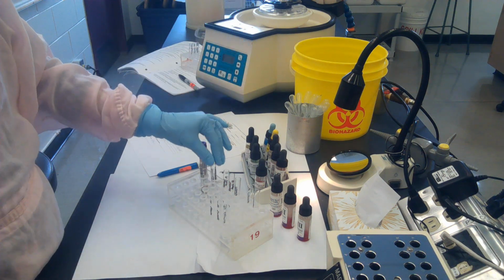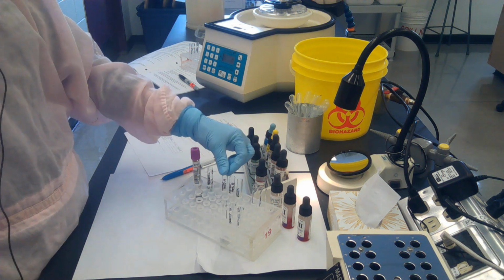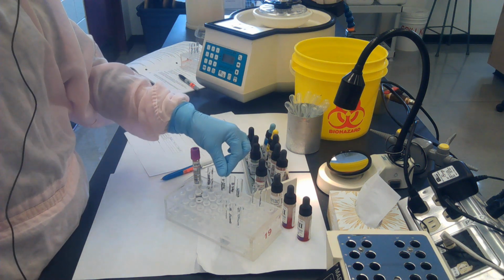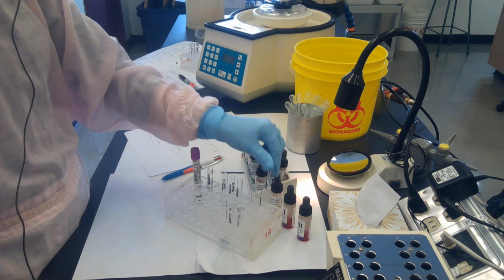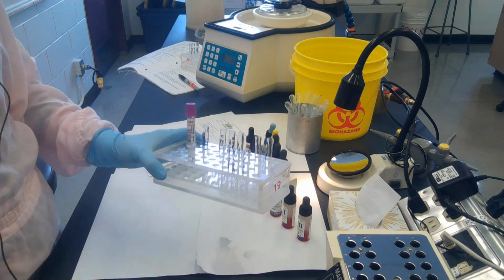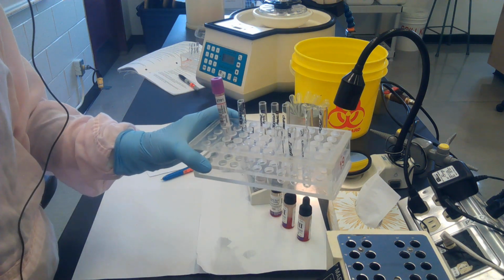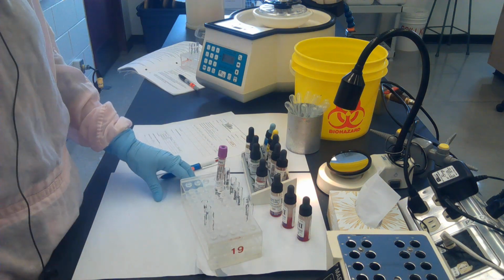Okay. In addition, I've got the test tubes for my testing. I've got tubes labeled with the accession number, anti-A, anti-B, anti-D, A1 cells, B cells, and then I've got 3 test tubes here for the antibody screen. So that's my test tubes. I've got them all ready, and I'm ready to begin my type and screen.